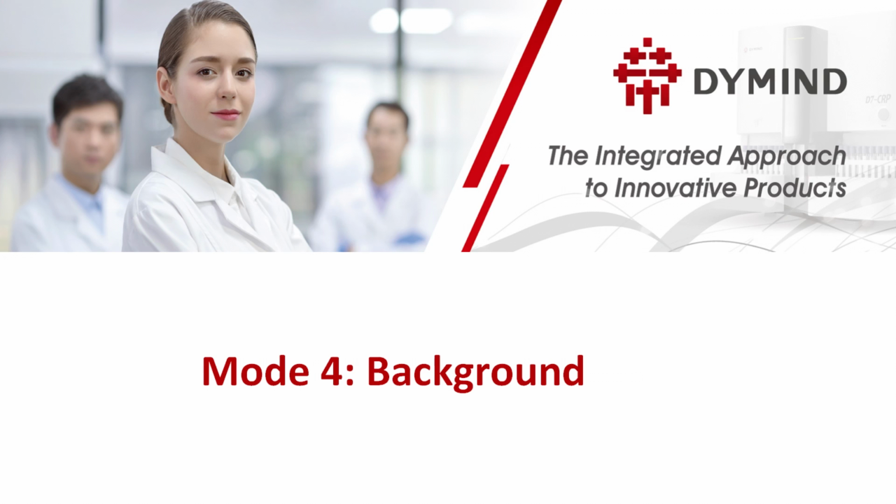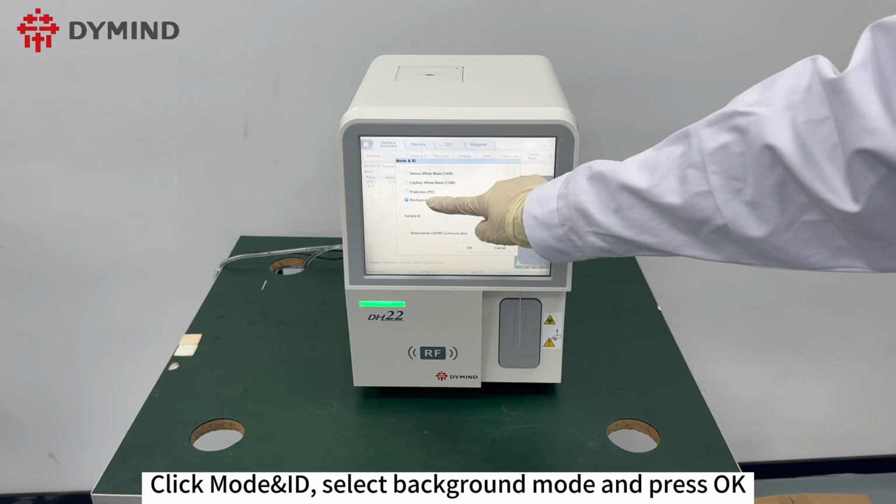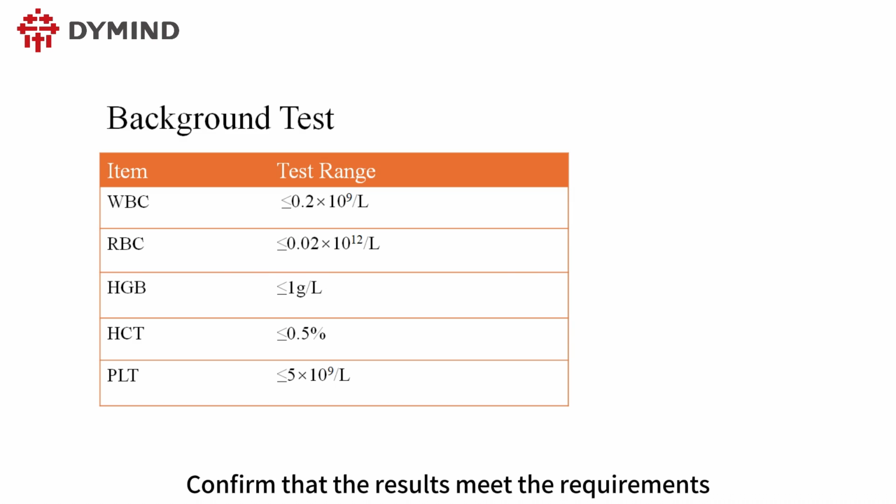Mode 4, Background. Click Mode, ID, select Background Mode and press OK. Press Aspiration button to run the background test. Confirm that the results meet the requirements.